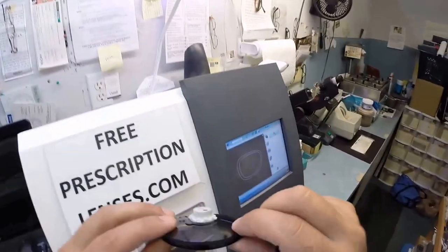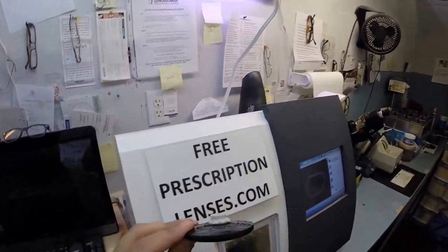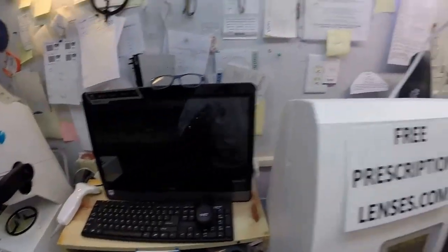The other thing I ordered with your lenses since I had these custom ground is I had a flatter front curvature. So it's known as aspheric. A spherical lens is completely round in every direction like a basketball, gives you an ugly cosmetic fishbowl appearance. This is a much flatter lens that's going to fit in today's flatter curvature frames. So again it's going to give you the best cosmetic fit possible. Now it's measuring one more time. It's own little check and balance system. Now you can see exactly where I told it to place the bevel. And if you notice your lens is completely flat, just like a nickel. If I were to take it out now it would stand up on the counter on its own. Now it's getting the v-shaped, the knife-like bevel applied to the lens. I tell everyone that your lens is going to be so sharp you might be able to cut a piece of wet tissue.